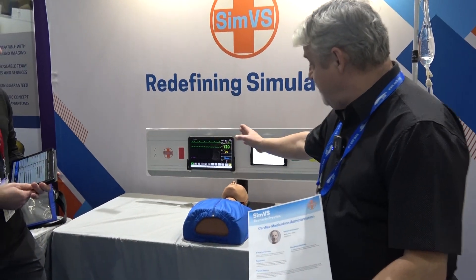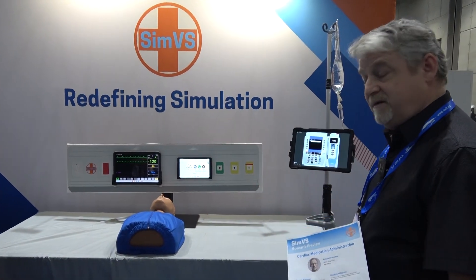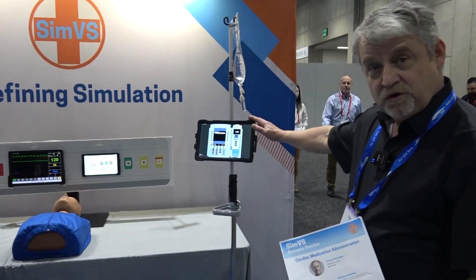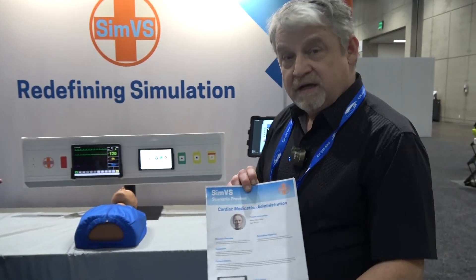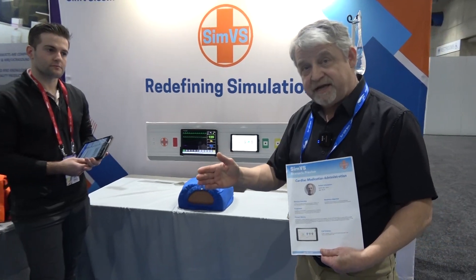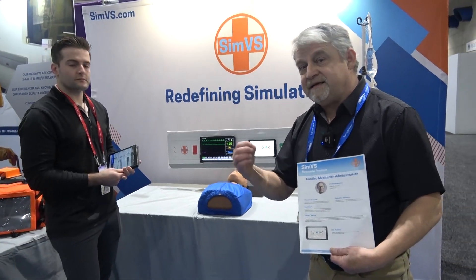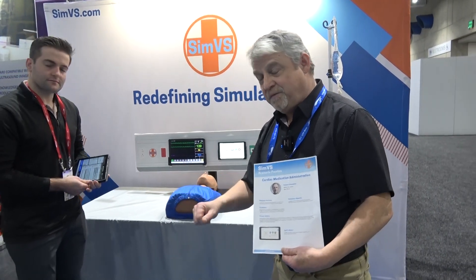We're going to use our hospital monitor, our nurse call system, and the world's first IV pump simulator. This is a preview of a webinar we're going to do on February 6th with Healthy Simulation — we're going to do a deep dive on this scenario. So today is just a quick overview.